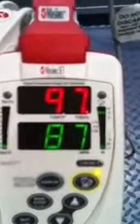I've already attached the sensor, so at a certain point when it's done checking, you'll see this sort of display. Then it will go ahead and measure my pulse oximeter reading on the top and then my heart rate right below it. And then as you see the strength indicator indicating full bars, good strong pulse, good strong reading.